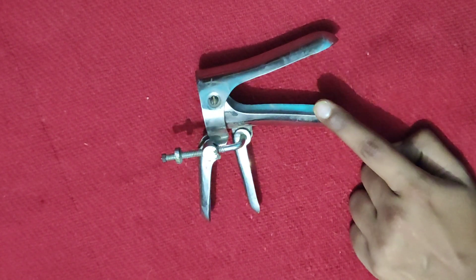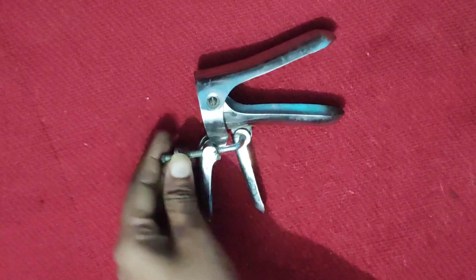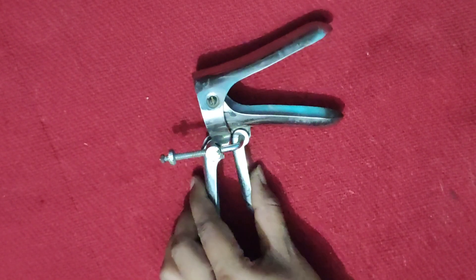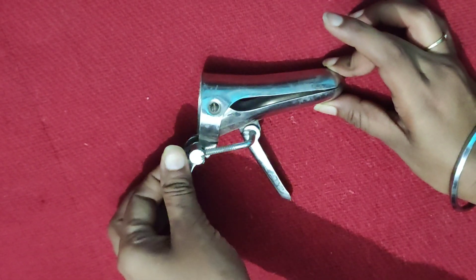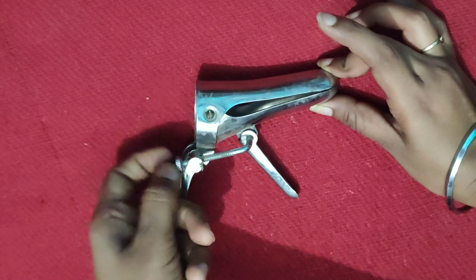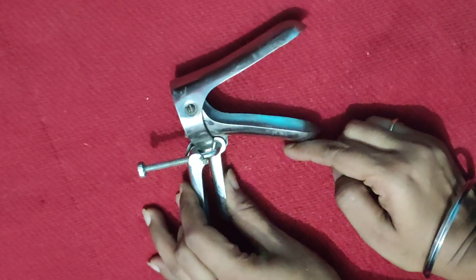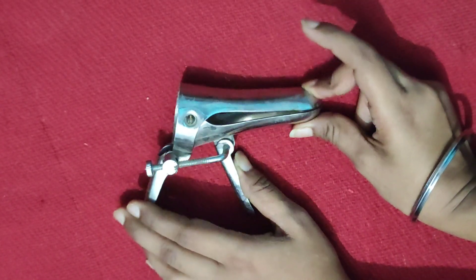It has an anterior blade and a posterior blade, with a screw to open the blades. This is the screw which is used to widen and close the blades. Once we close the screw, it will fix in position and we can wipe the mouth of the blade.